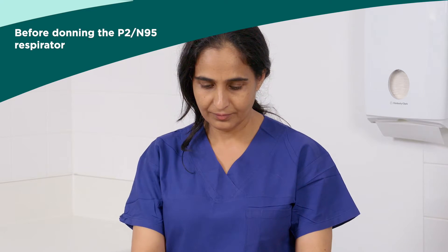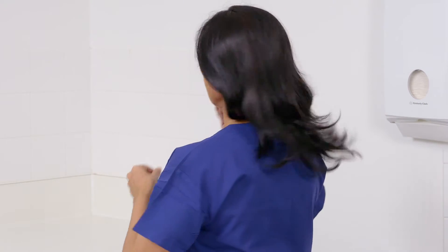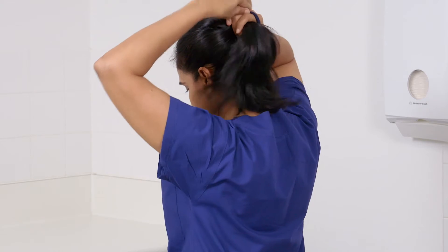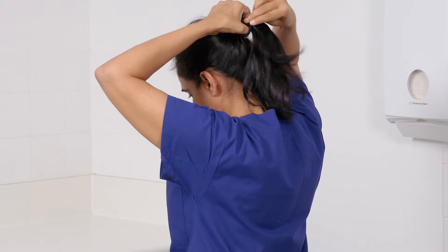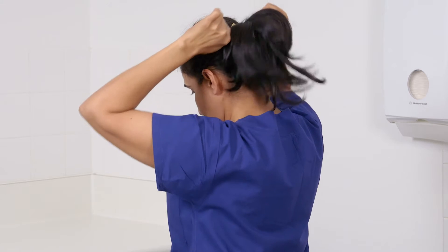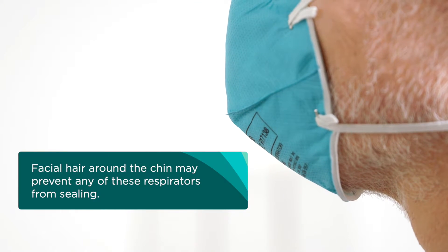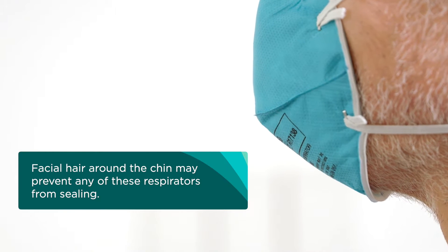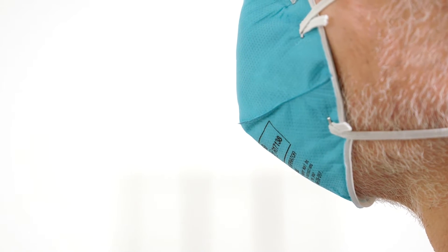Remove glasses if wearing. Ensure long hair is tied back so it does not become tangled in the straps of the respirator. It is important to know that any amount of facial hair around the chin may prevent any of these respirators from sealing. An adequate seal cannot be guaranteed if you have facial hair.